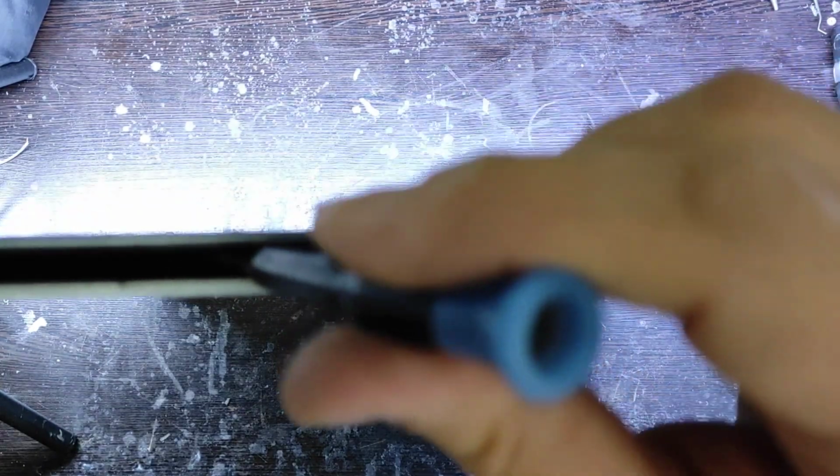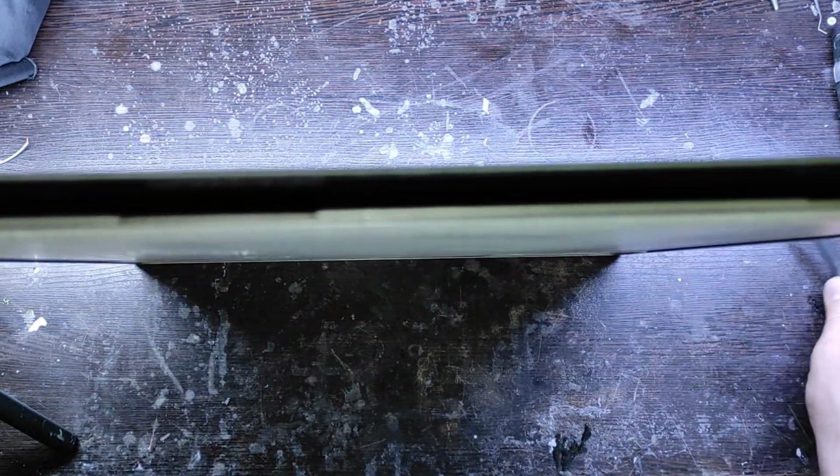This is the compartment inside the cassette, where the front part of the image display screen is made of a sponge-like material to protect it from impact.